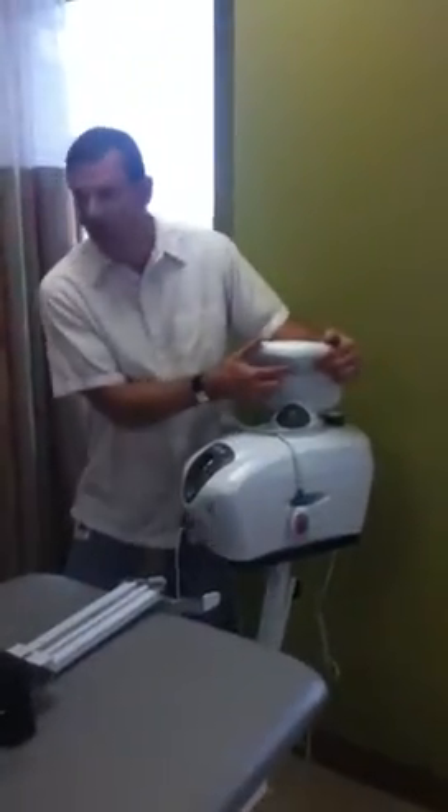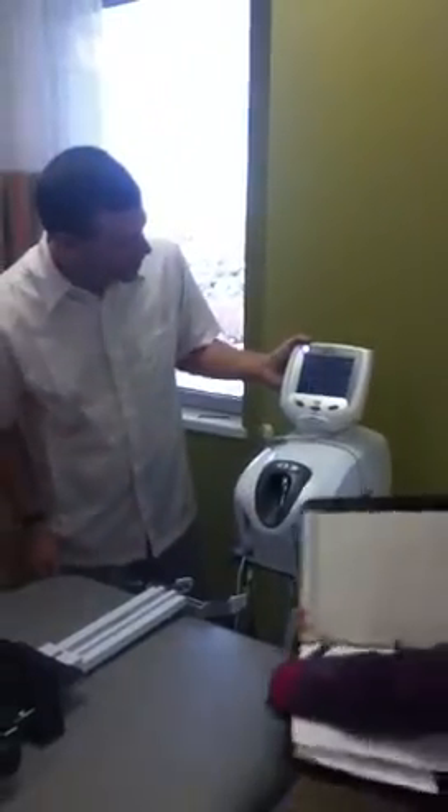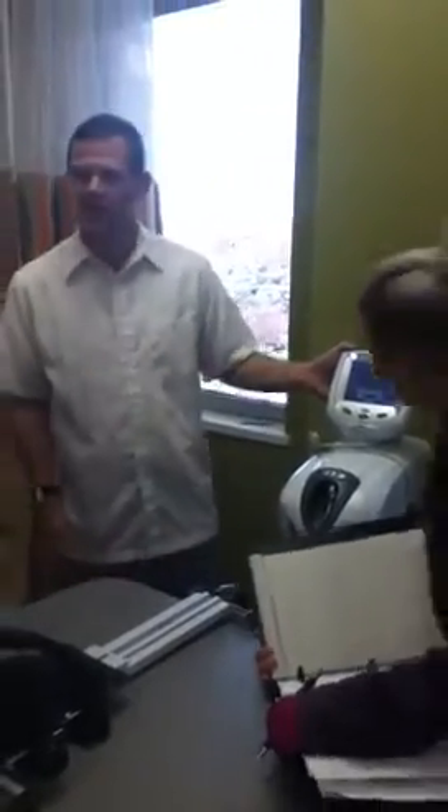If you can see it, there's a little dial right there, so that's going to make the screen brighter or less bright. So now I can't see it, but somewhere in the middle I can see it. Can you guys see it?